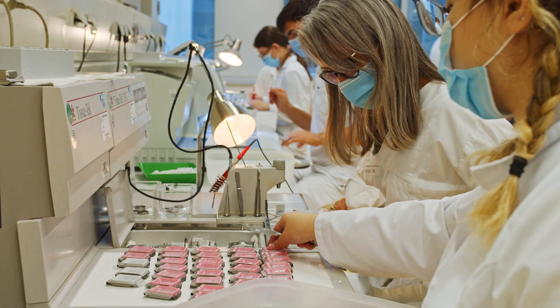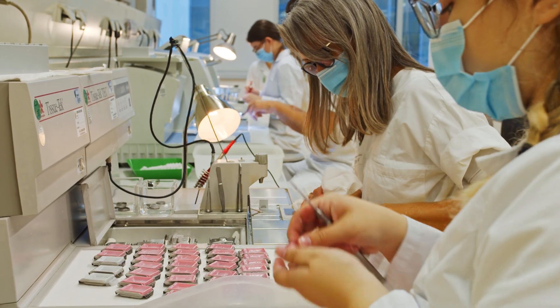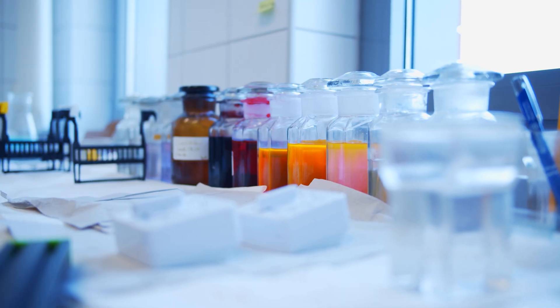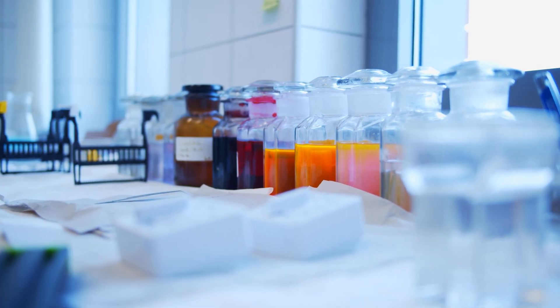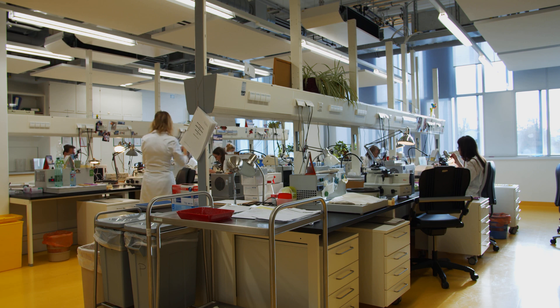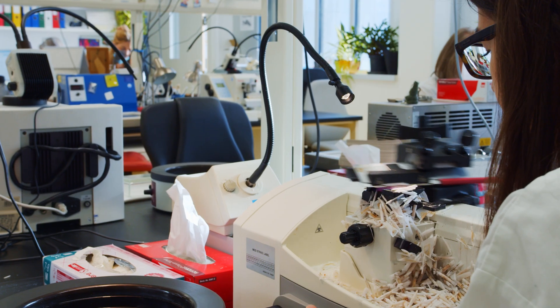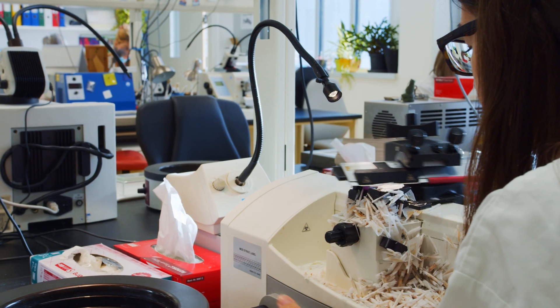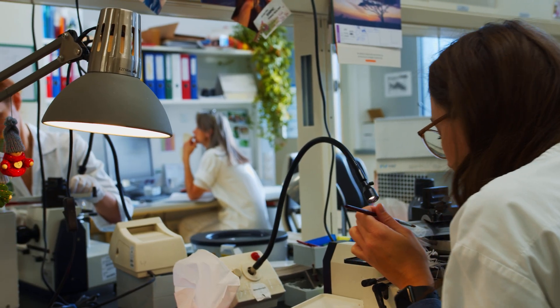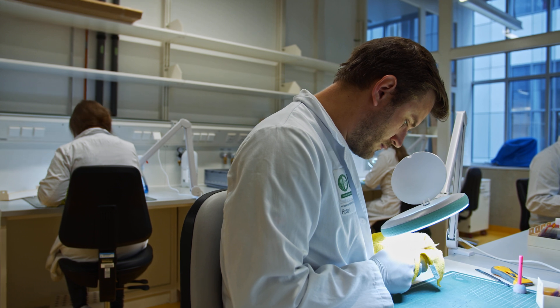Every morning, thousands of people wake up for one mission, a unique one, to help discover the disease processes so patients can get the proper treatment.